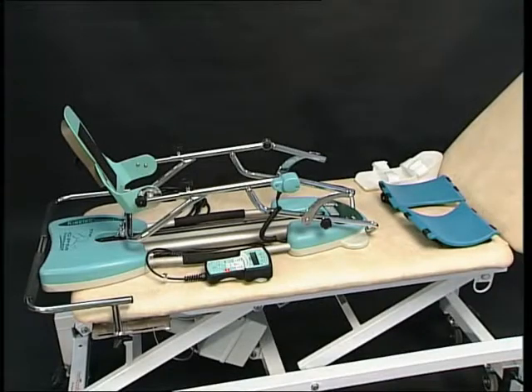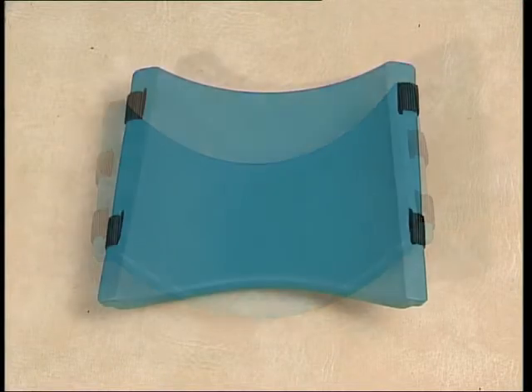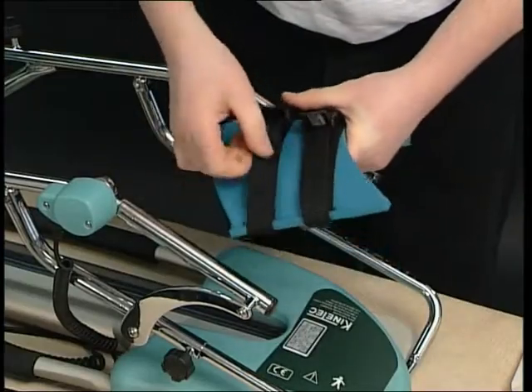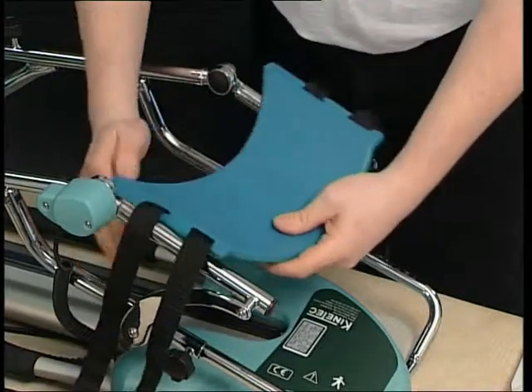The Hygienic Plastic Supports include a thigh support, a leg support, and a foot support. The straps afford rapid installation and could be adjusted to accommodate limbs of different dimensions.